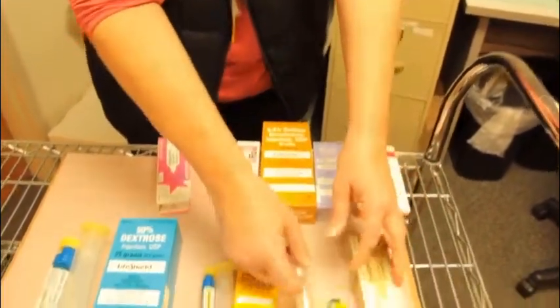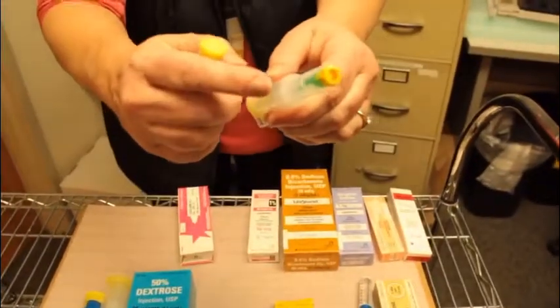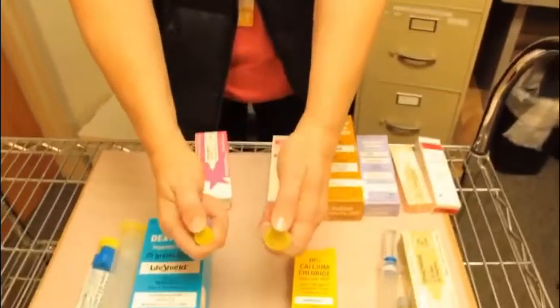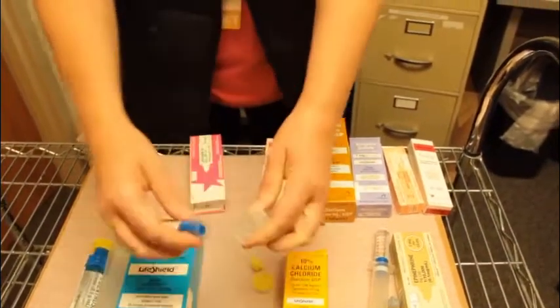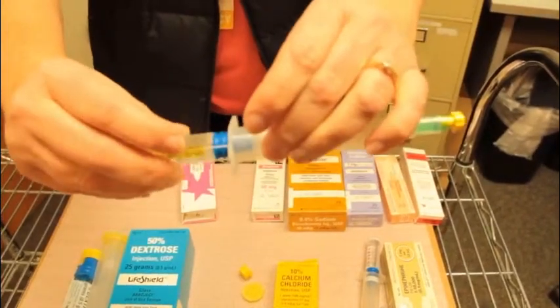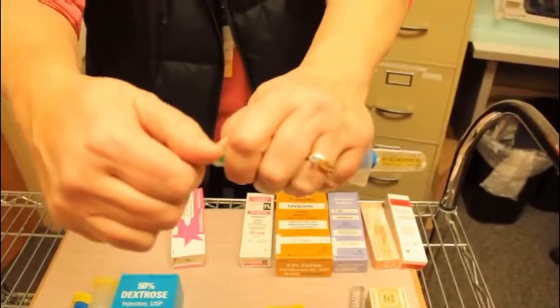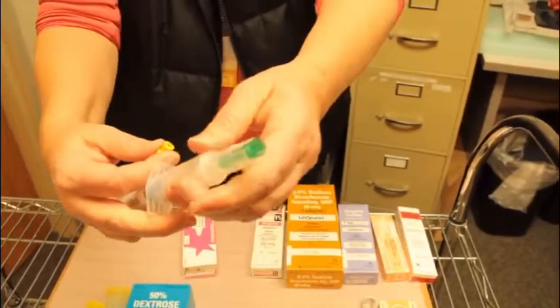The other type of syringe has a needle already attached in that green section. There's really no need to use that. We'll still assemble them the same way. Just flip the yellow pieces off, just gently screw them together. And in this case, all you need to do to get the luer lock is to twist off the little yellow cap, and then you have your luer lock site.